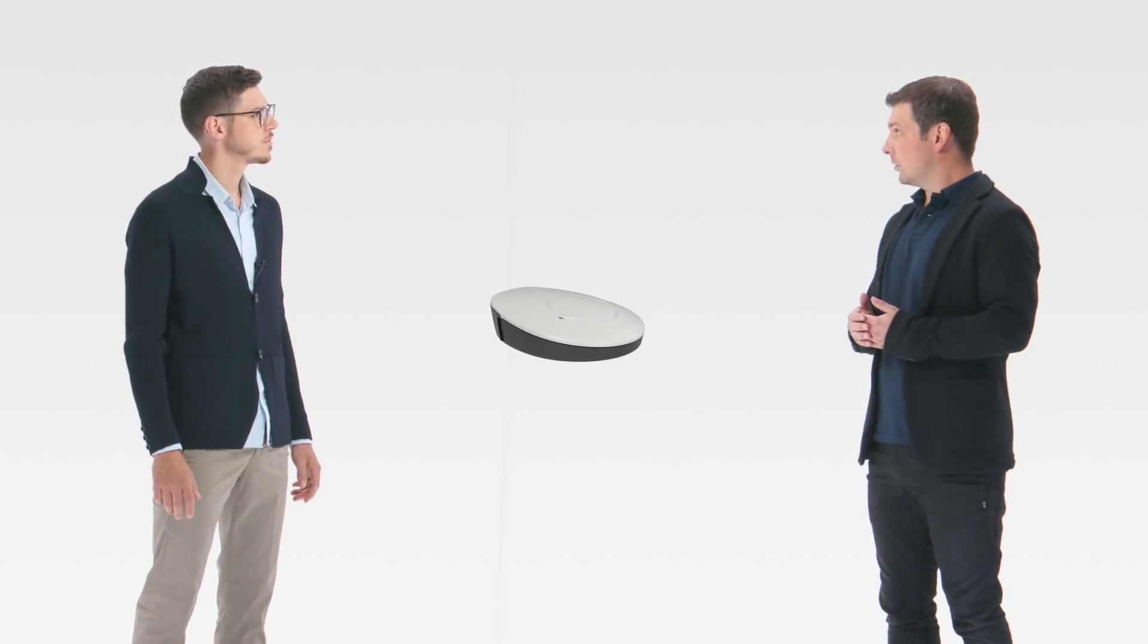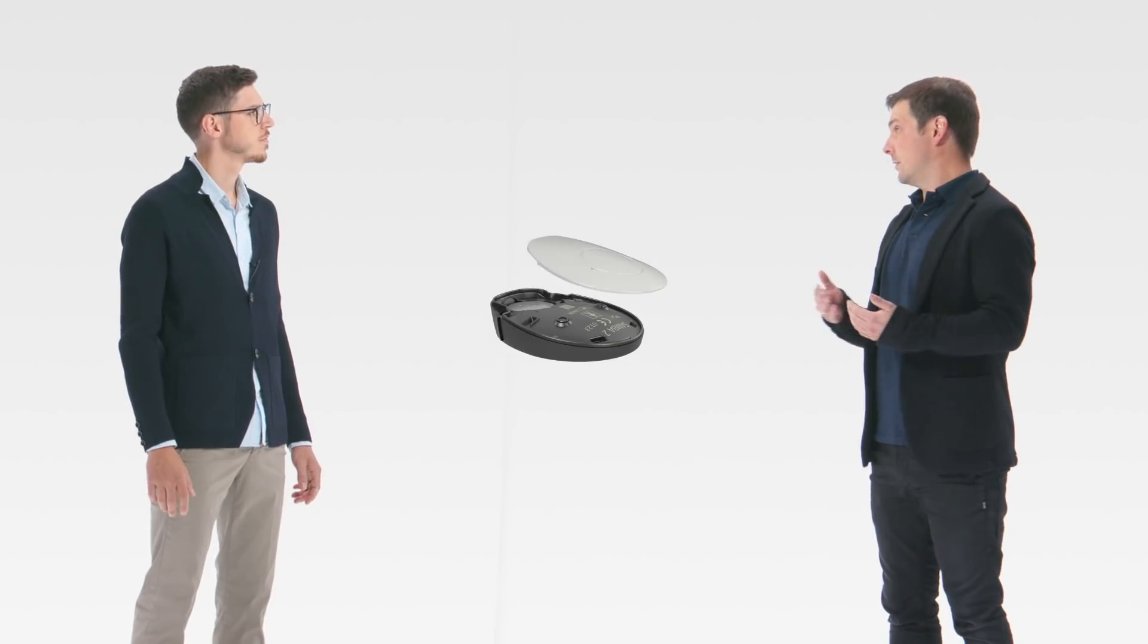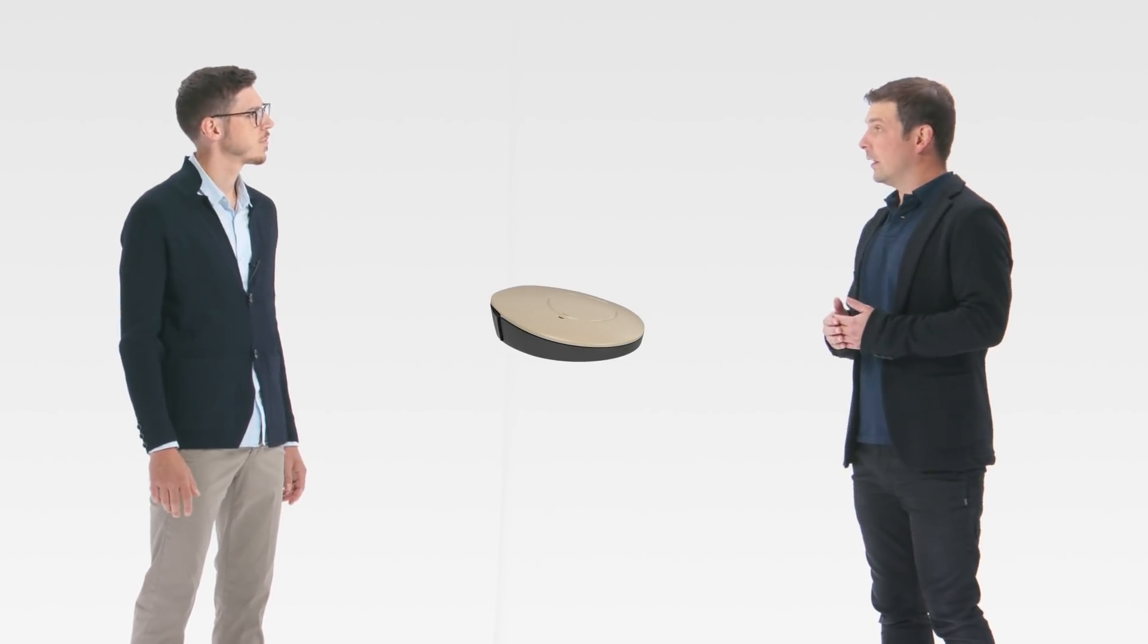So how did you make handling easier? We listened to feedback from users and professionals and we built Samba2 with this in mind. We redesigned the battery door, swapping covers is very easy and we added new attachment clip options.